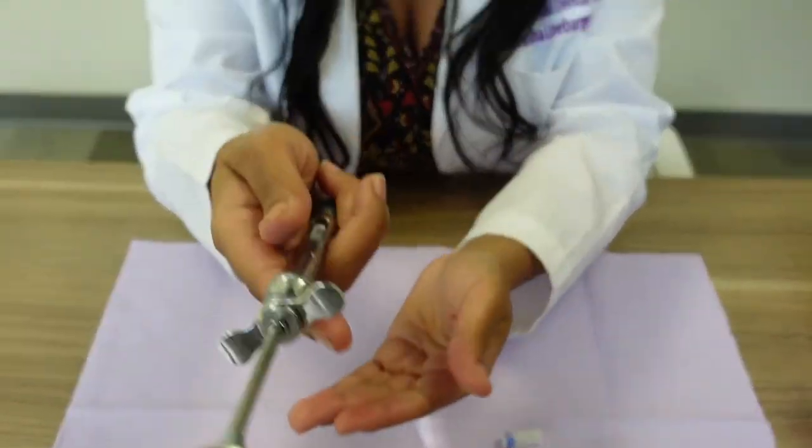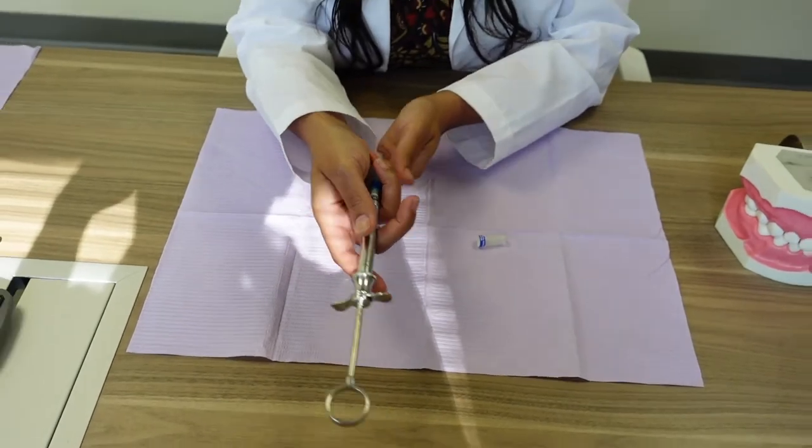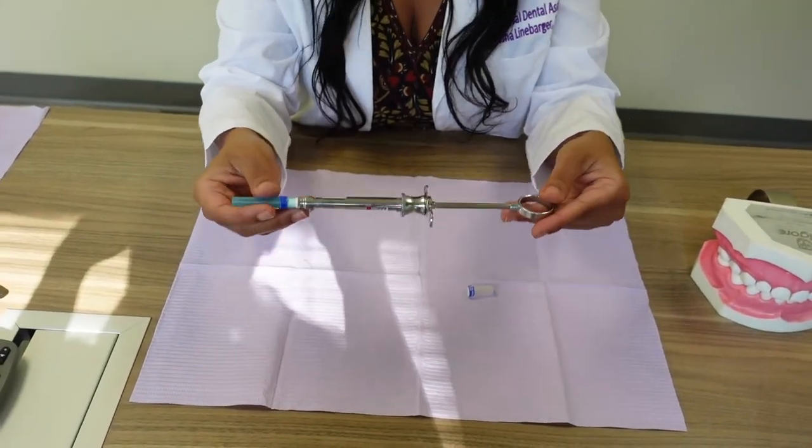And that's how you actually hand the aspirating syringe to the doctor. Alright, now that is wonderful! So we're going to move on to some more videos. I hope you enjoy!